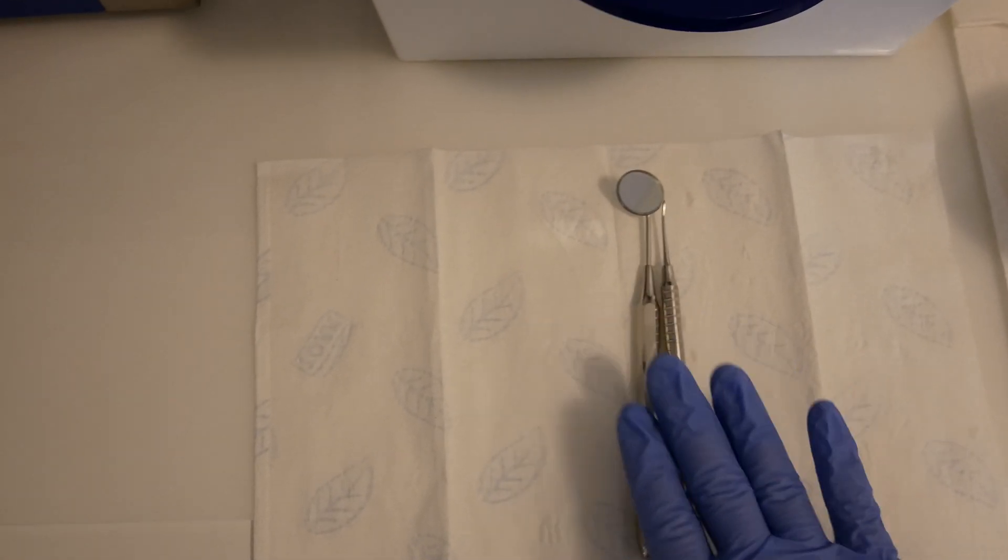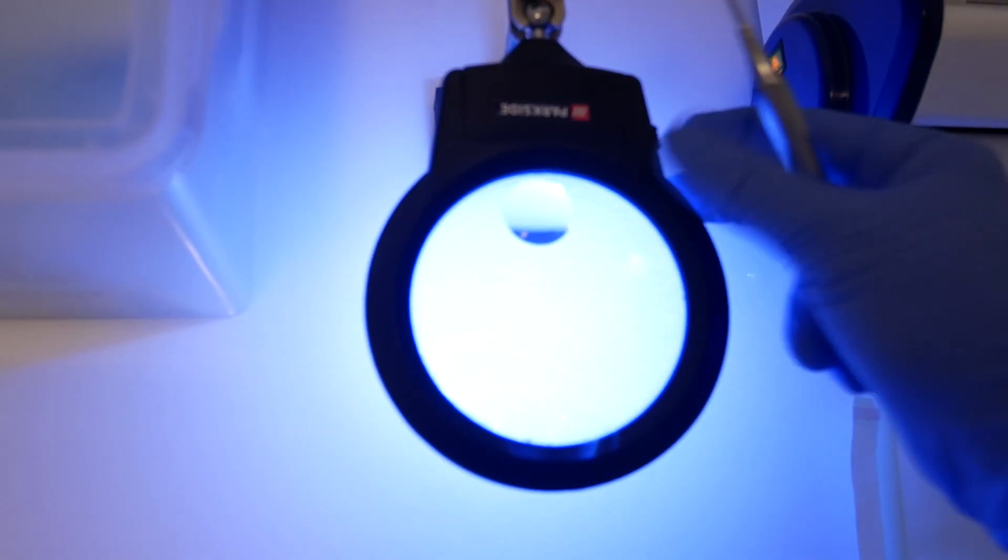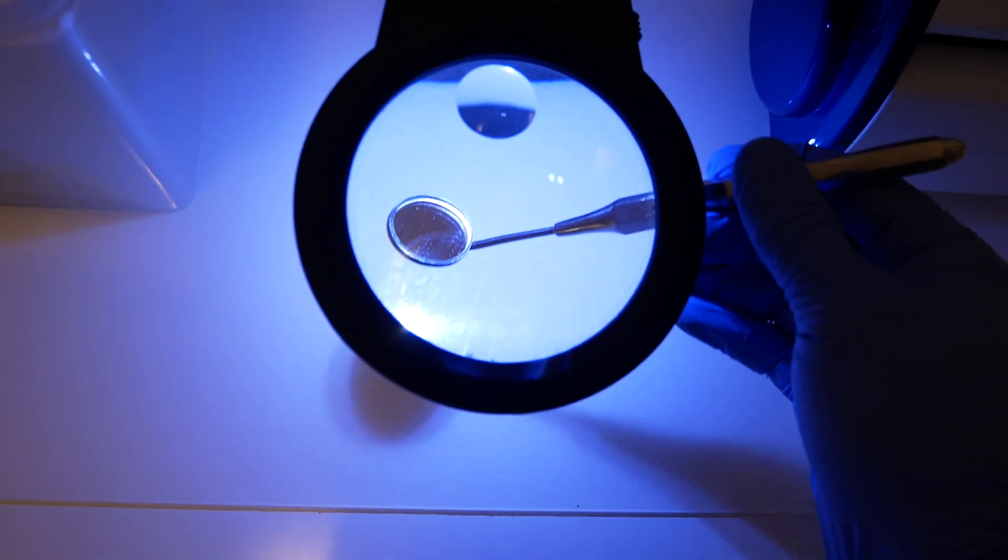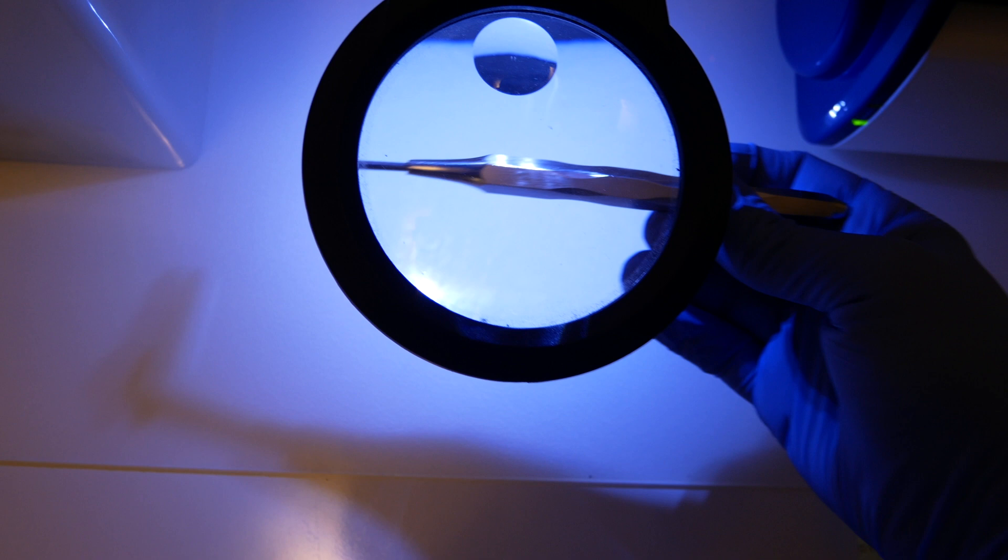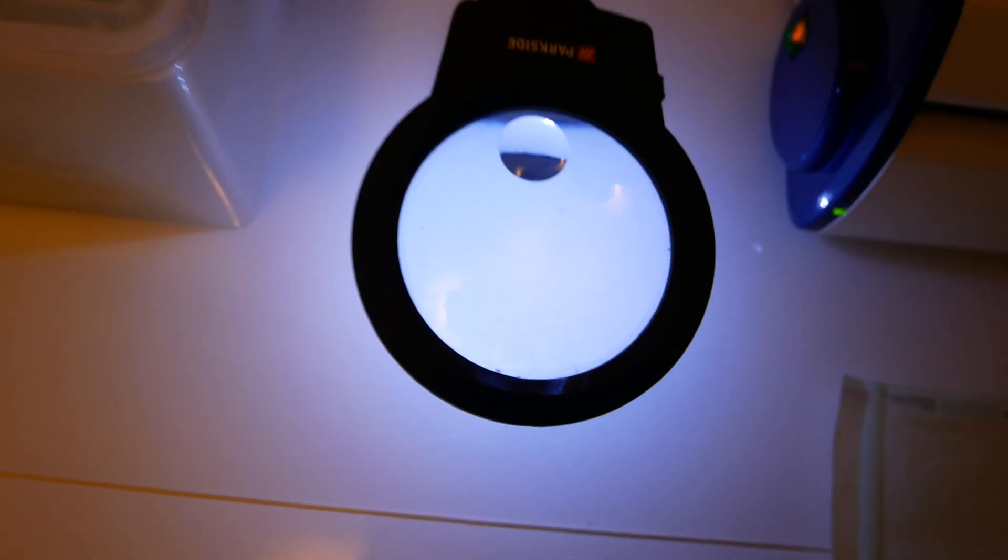So after the instruments are dried, you need to check them. In order to check them, I'm using a magnifier glass with light. So you need to look for any sign of debris or contamination.